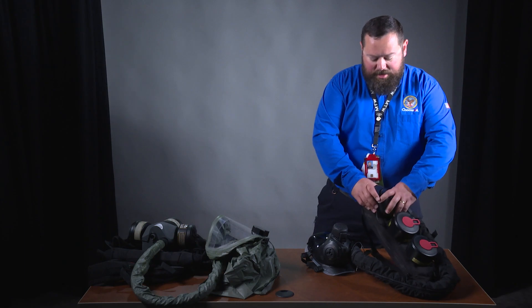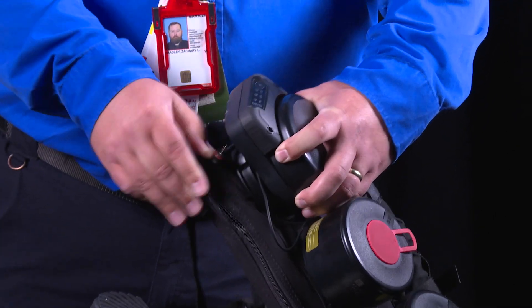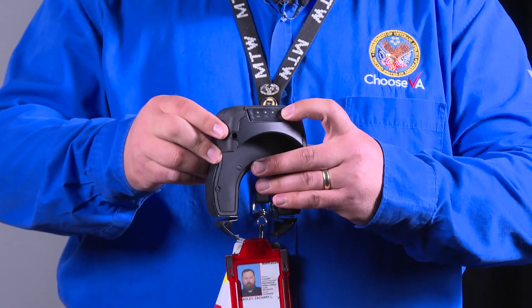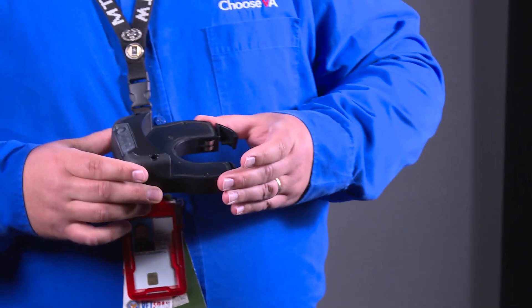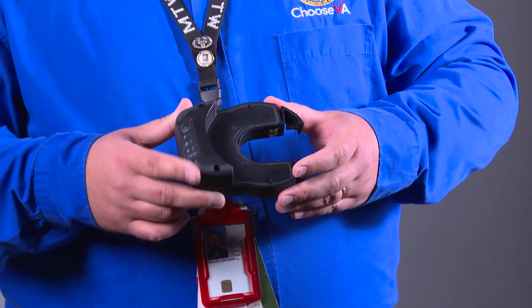The battery on this device is detachable. There are several versions available. One of the versions is a rechargeable device, which is horseshoe-shaped and has a battery on-off and level indicator. Another version uses CR123 rechargeable or non-rechargeable batteries.